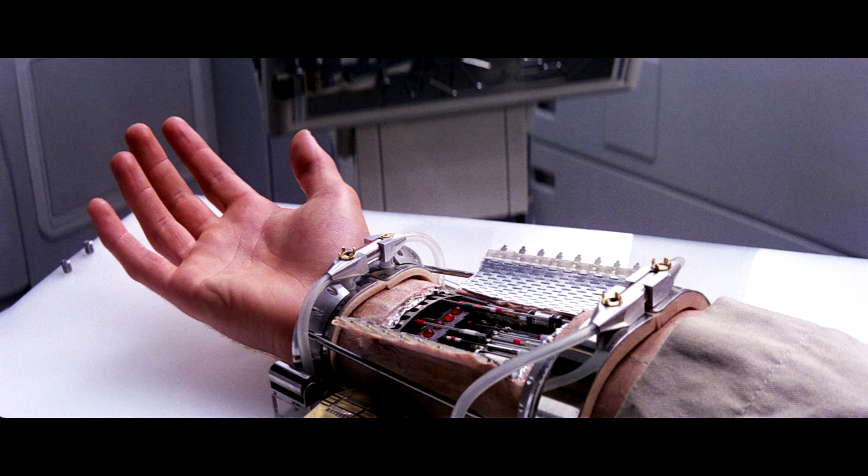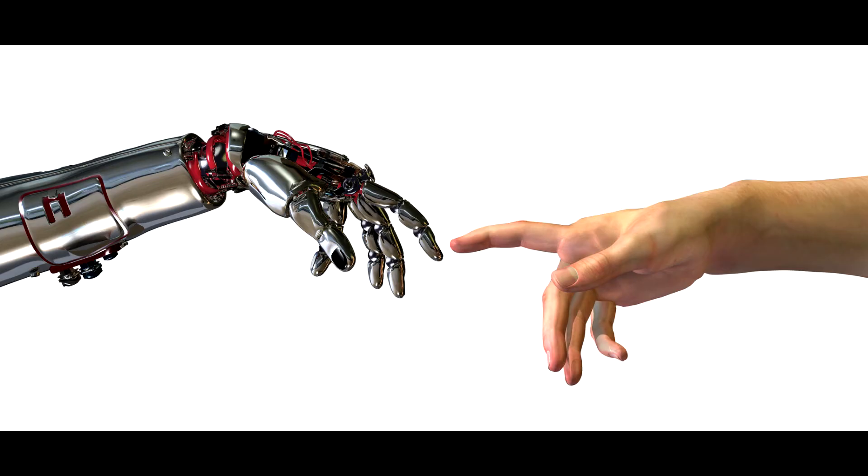Provided this new bionic hand continues to function for the long haul, it seems at least two more names might soon be added to this list.